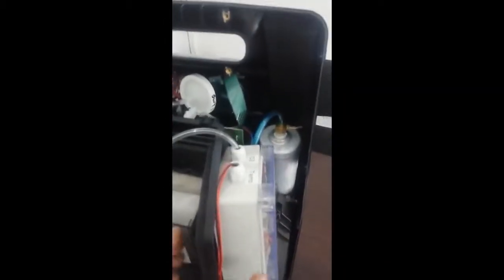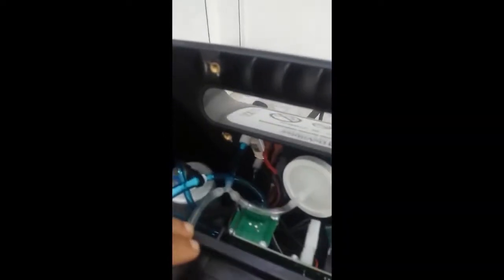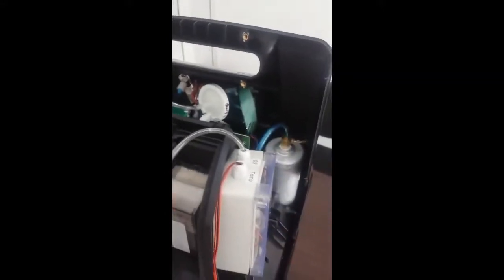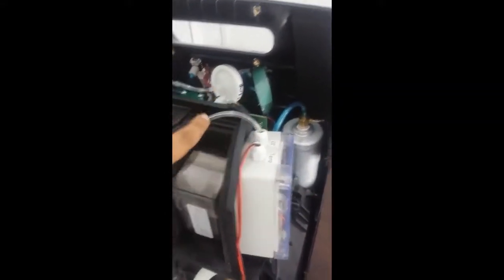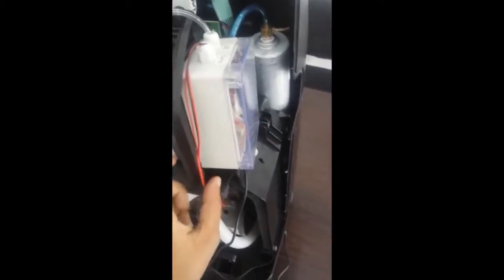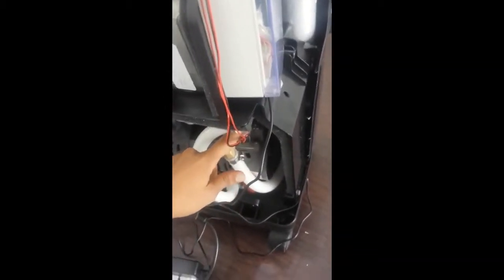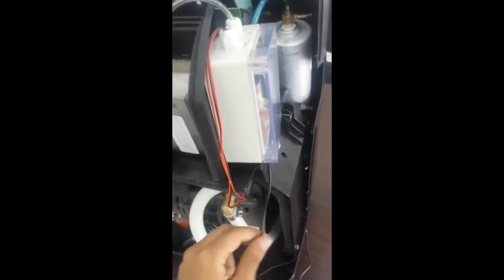As you can see, this is our Internet of Things box. We have used a Y-shape connector to take a sample to our box to be measured and sent by Wi-Fi to the website. The other path goes as normal to the patient. Here we have the temperature sensor, which is placed on the compressor to sense the compressor temperature and alert us when it is overheated. And here we have the power source.